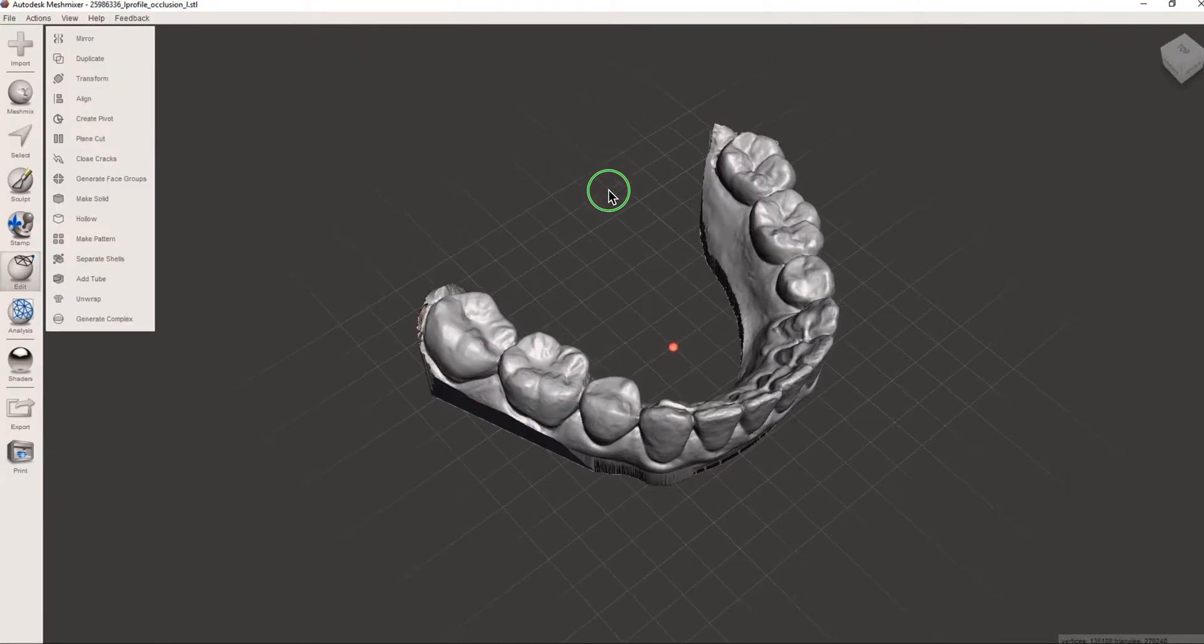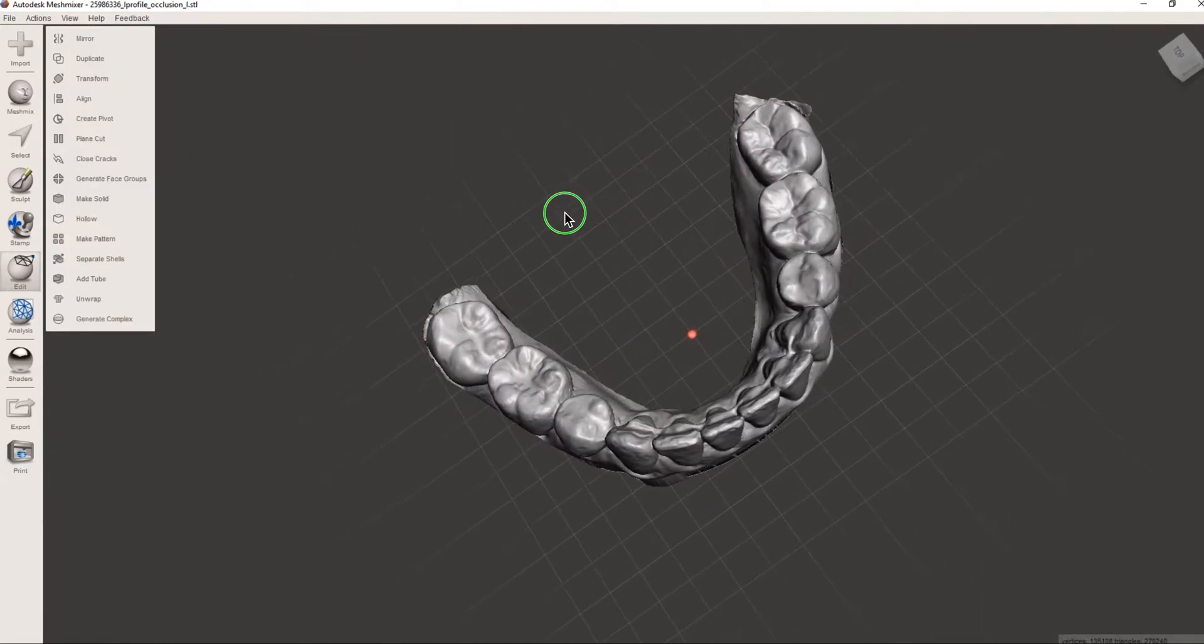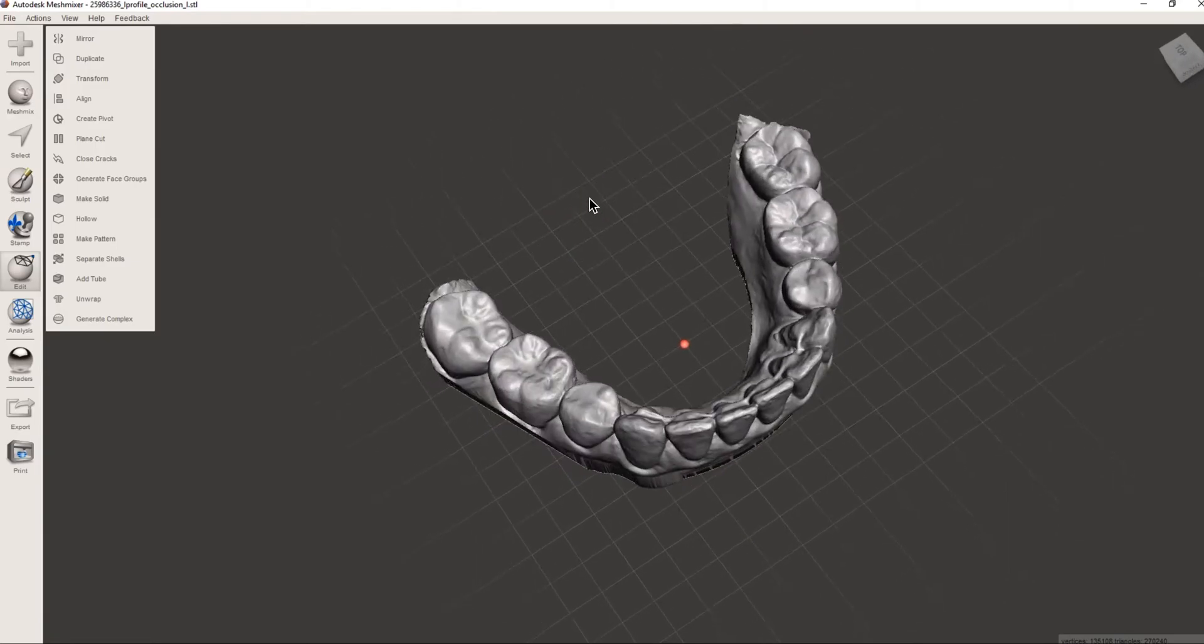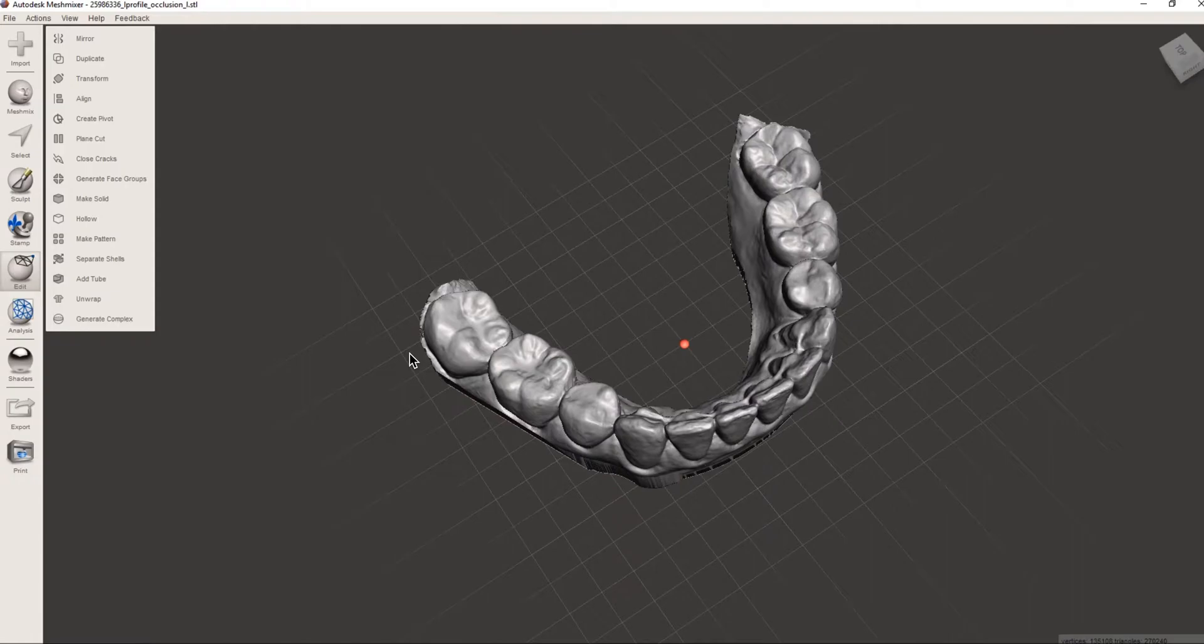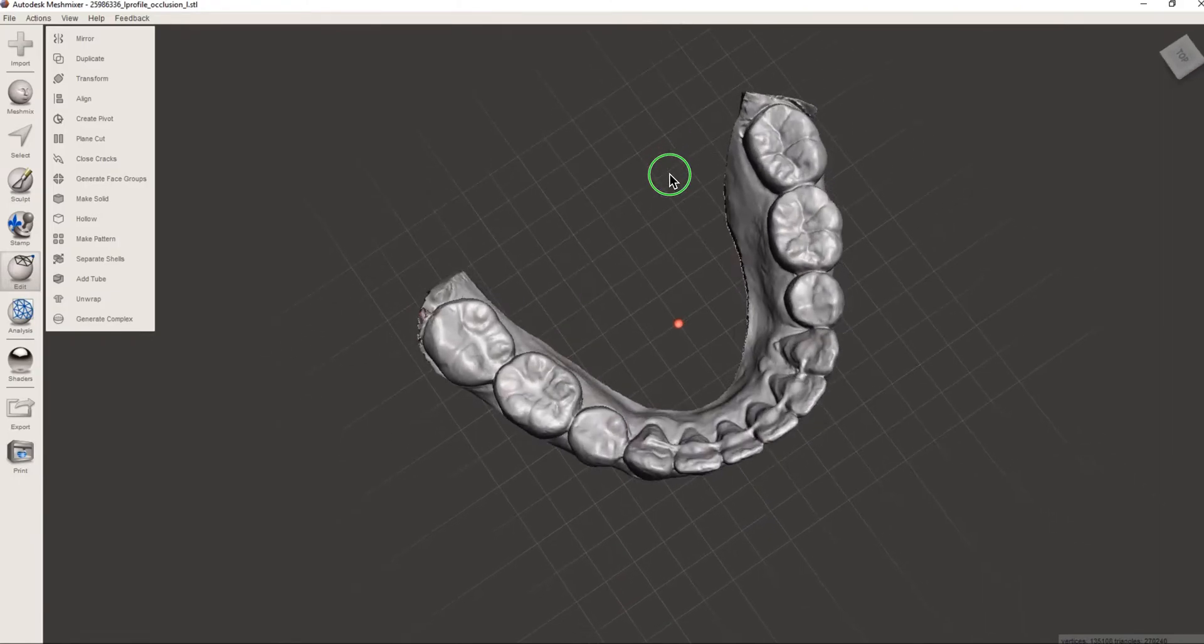Back out till we see green on the edges and then we'll accept. So pretty much this is a super clean model so we don't really need to do a whole lot of plain cuts but if it was choppy or it wasn't very well cleaned up when we did the scan we would have to make a plain cut here, plain cut, a few plain cuts around the edges. So when it's clean saves us a lot of time.